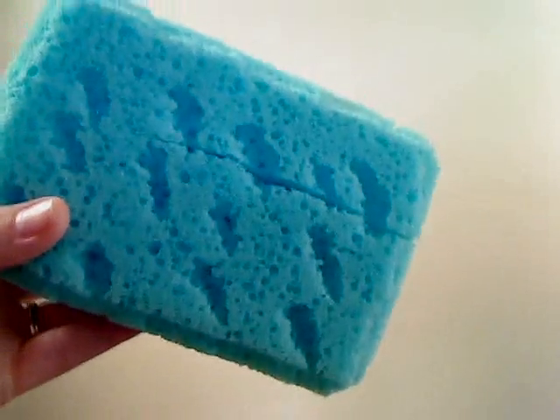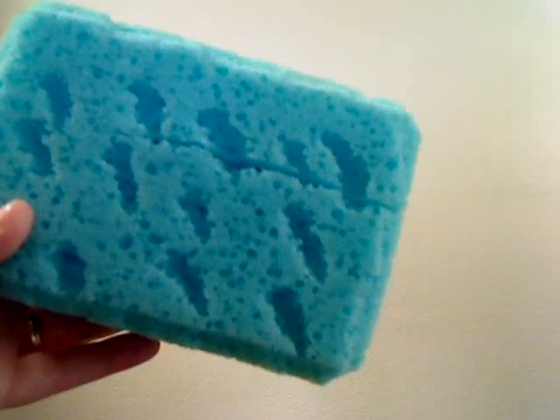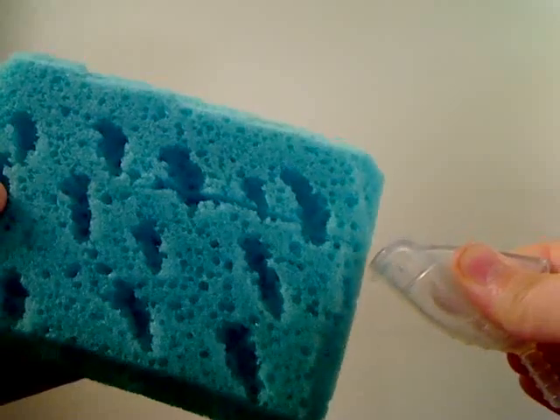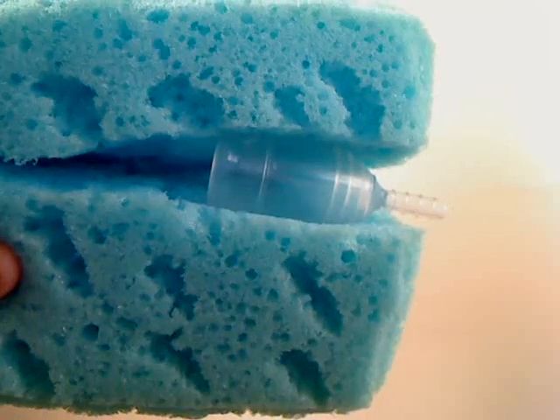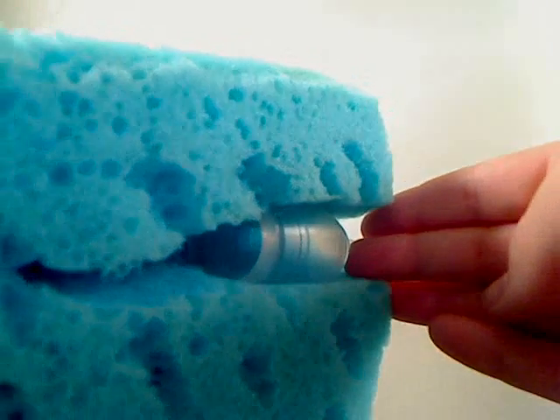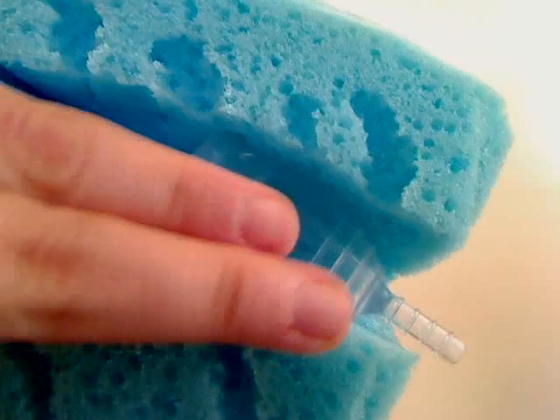And because that glass is so big, I decided to use a demonstration item that's a little bit more realistic in terms of how your body lays around a cup inside you. This is just a regular shower sponge — I bought it at the dollar store. So again, we've got it slanted back the way the natural angle goes. We've got our cup folded, and say that this here on the end is the entrance to the vagina. You would insert the cup like this, and then you would release it, and that is how it would sit inside. You can see from these angles that it may or may not be perfectly round when it's inside you — it just depends on your own natural shape. But your cervix would be right about up here, and that's basically the tiny hole that the blood or the flow comes out of, so it would just drain straight down into your cup.